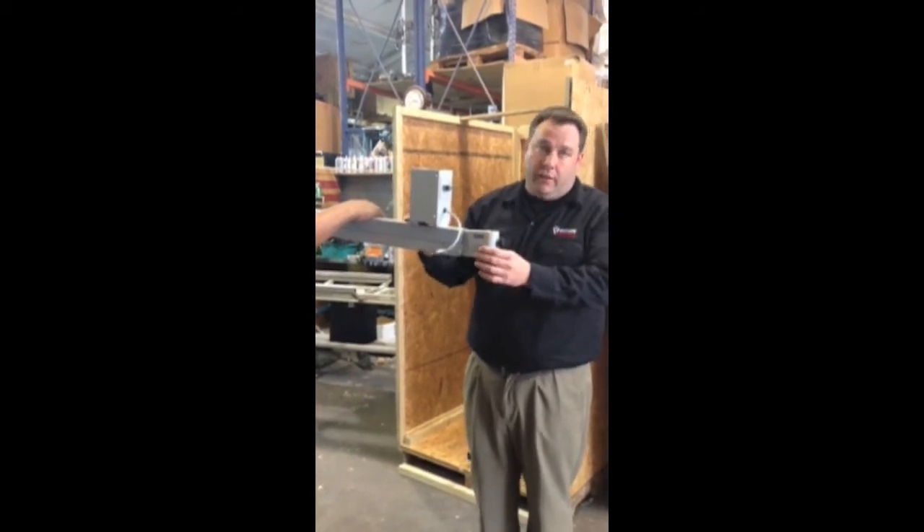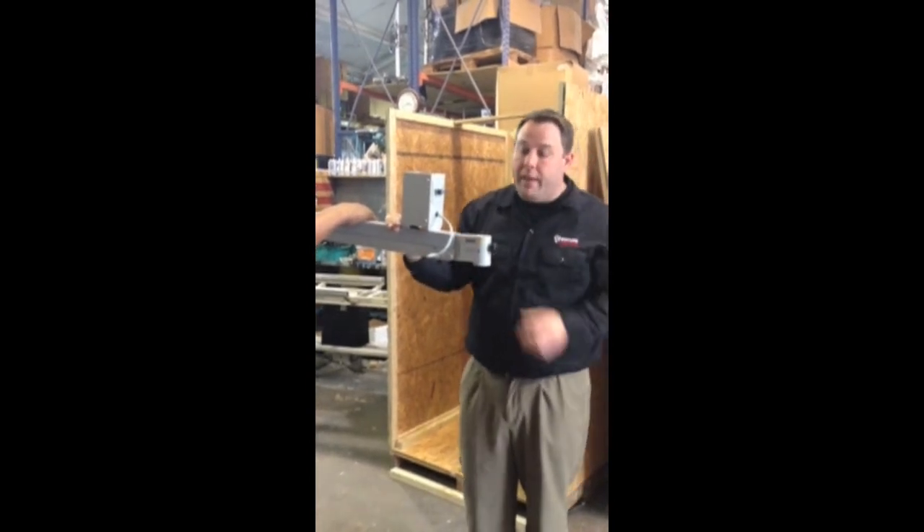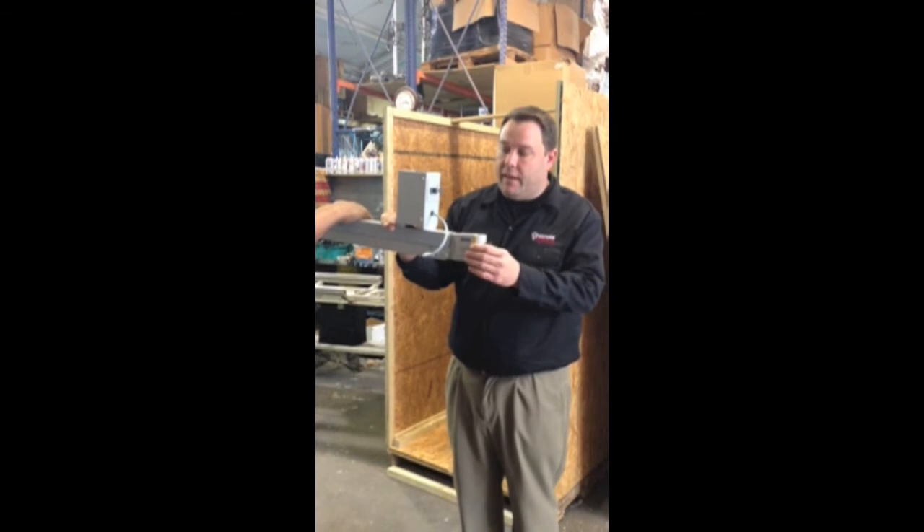You're going to need both your hands doing that, so you can't be holding this down and trying to put the head on at the same time. Chances are you're going to drop the head, and it's going to cost a lot of money to get that repaired.